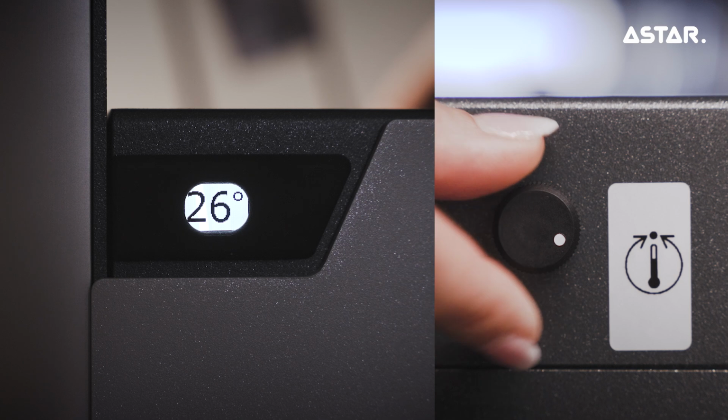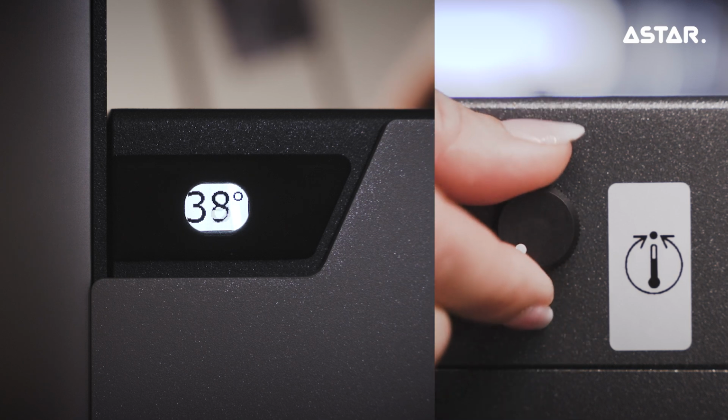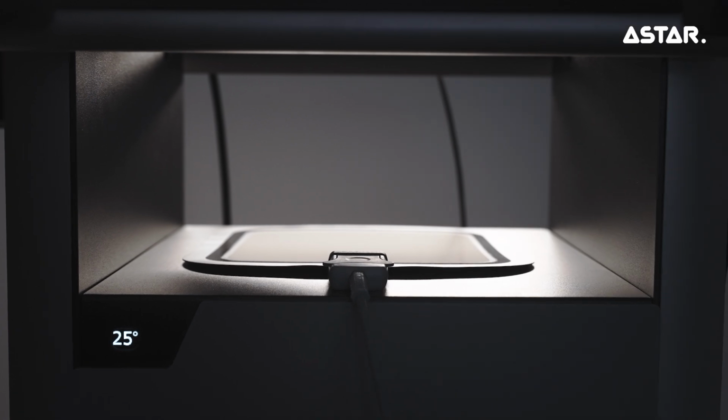Use the knob on the back of the trolley to adjust the desired temperature of the heater. The heater symbol on the LED display will indicate the heating is on. Place the passive electrode in the heater.